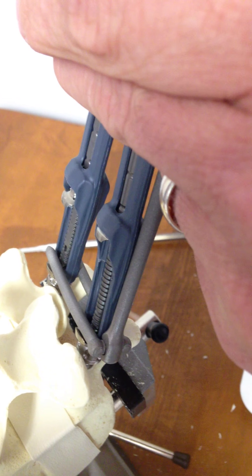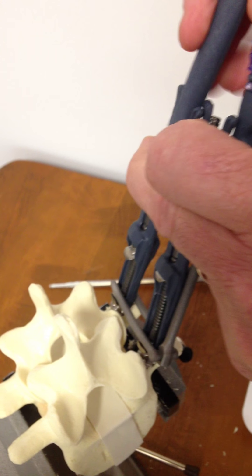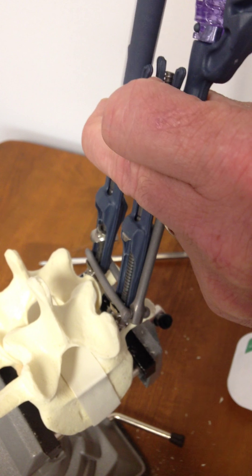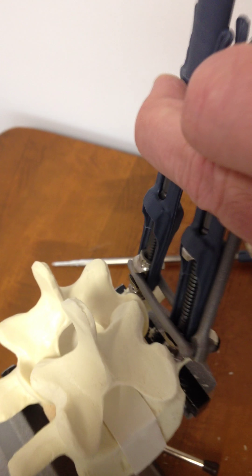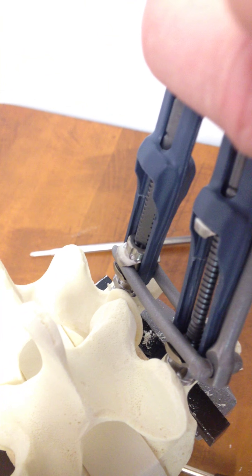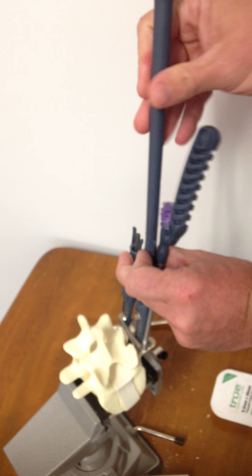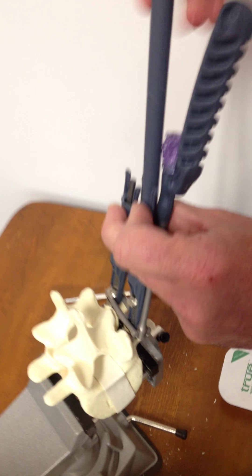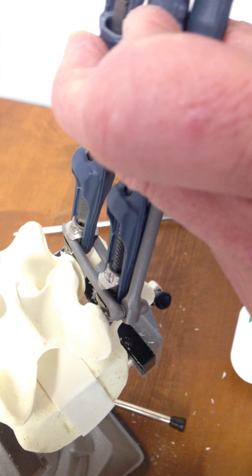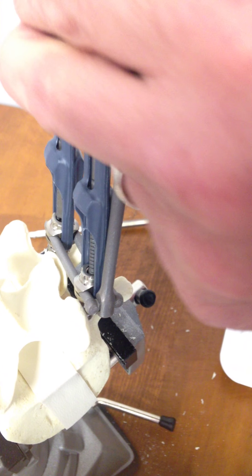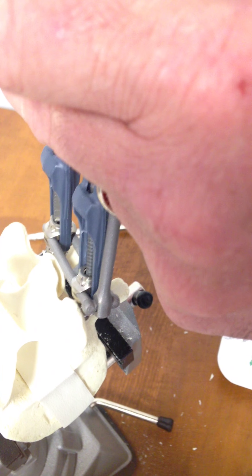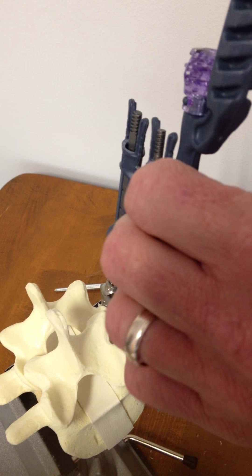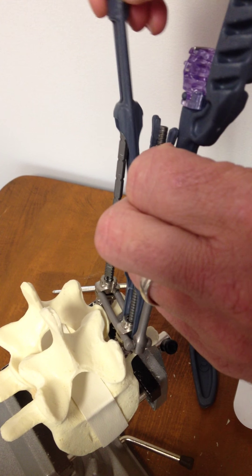From there, we'll be delivering the caps down on top. And with that, I'm using one of the instruments out of the convenience kit, and that simply screws down here, and again on the inferior cap, and bring that down into position. I'm going to bring those just snug.